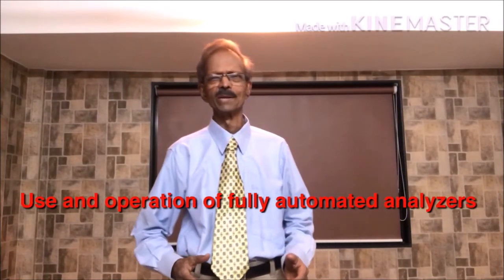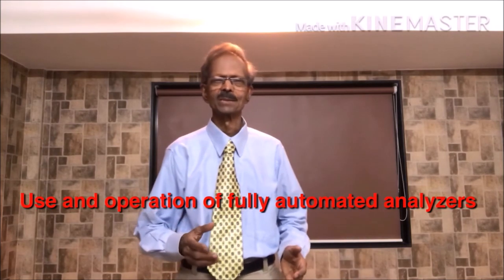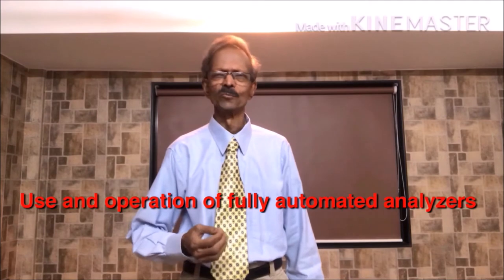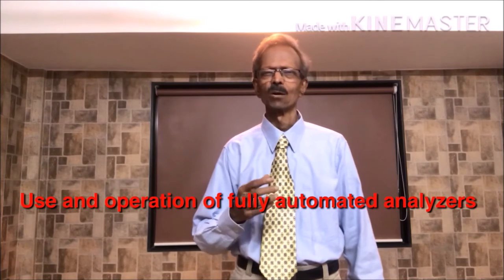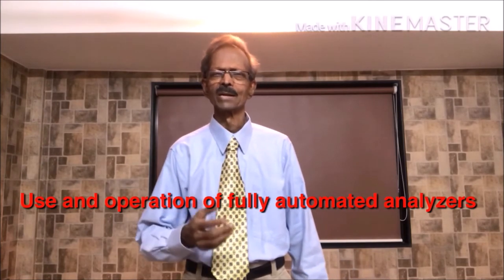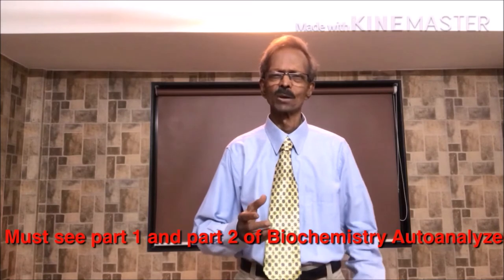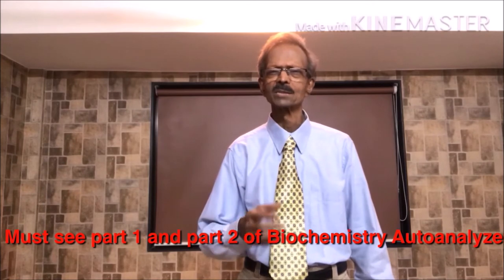Hello, I feel very happy to meet all of you on this YouTube channel. Today's topic is biochemistry autoanalysers part 3, in which I will give you information on how to use and operate fully automated random access autoanalysers. Before this presentation, you must see part 1 and part 2 of this biochemistry autoanalysers series so that you will understand this presentation better. So let us start and see the presentation.